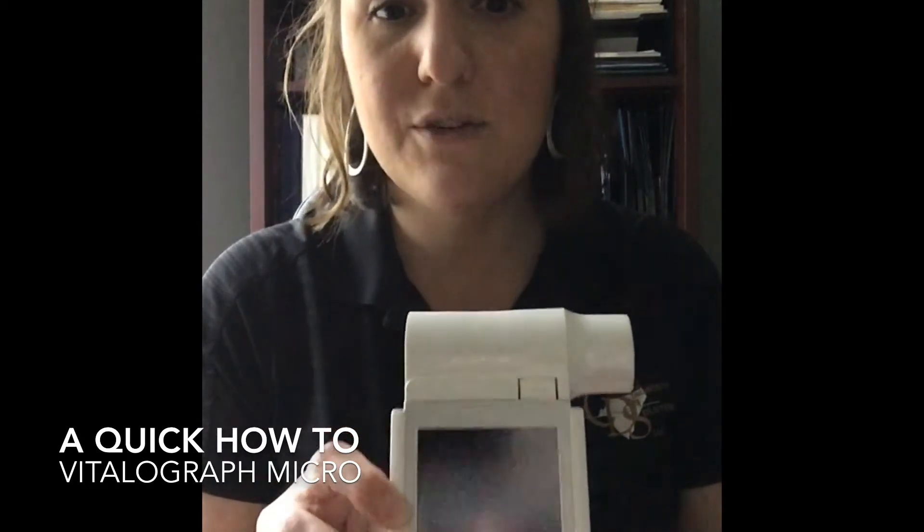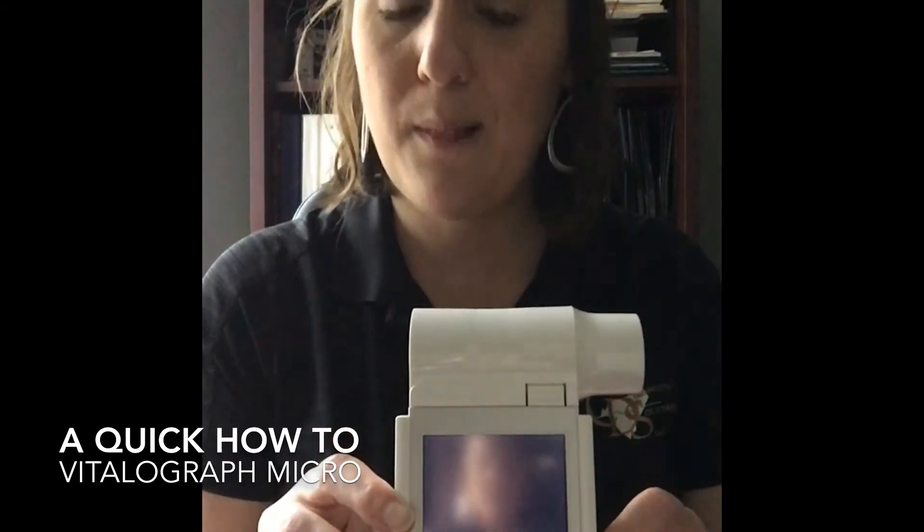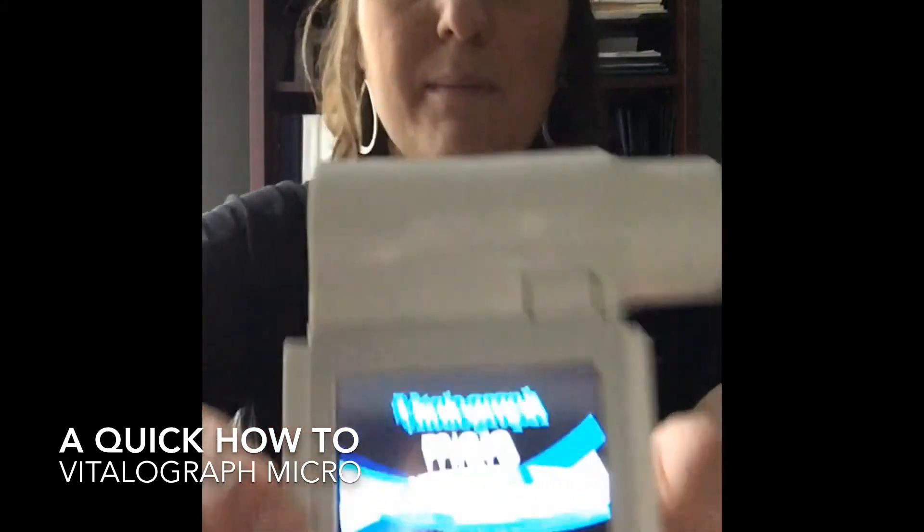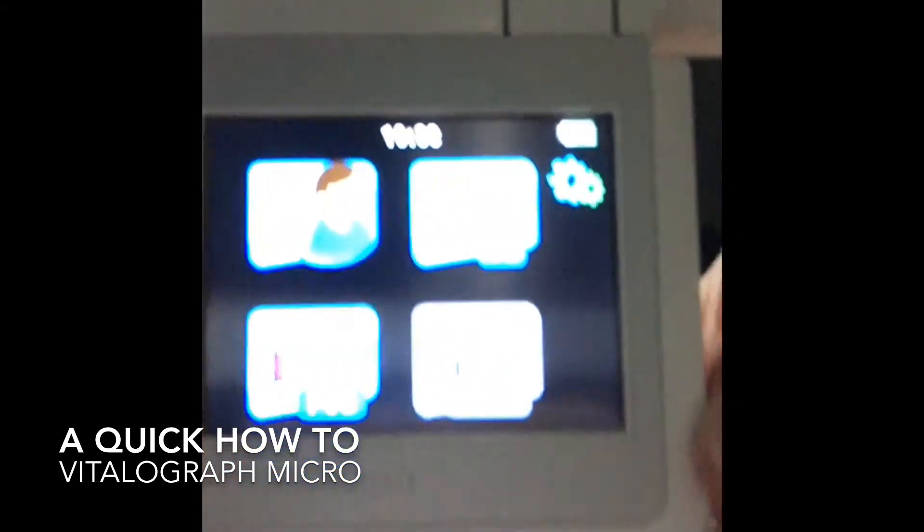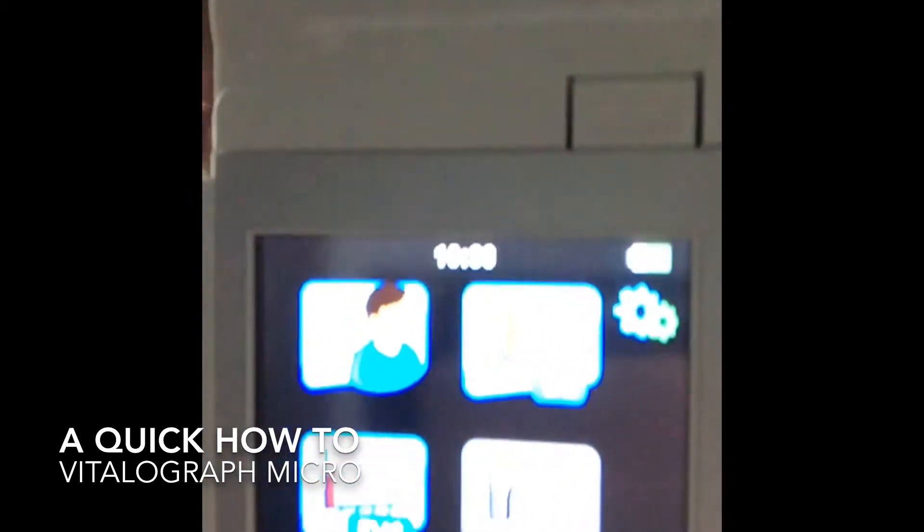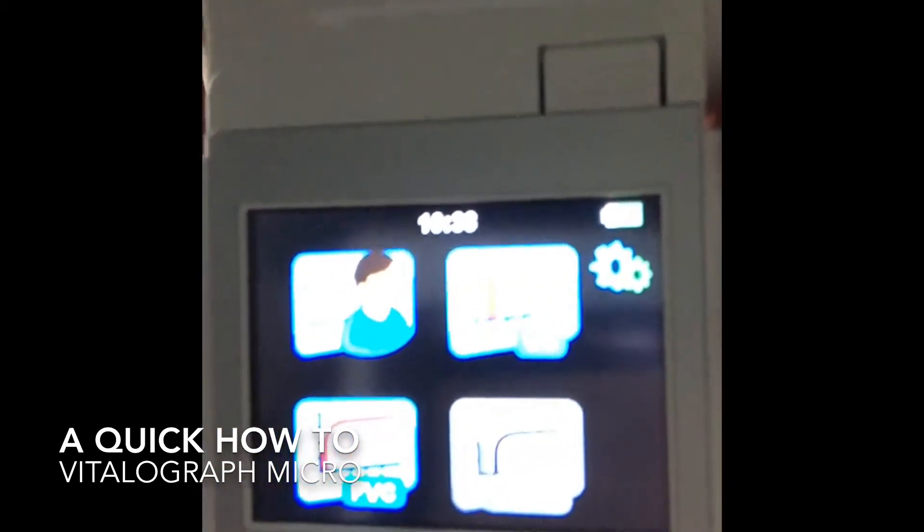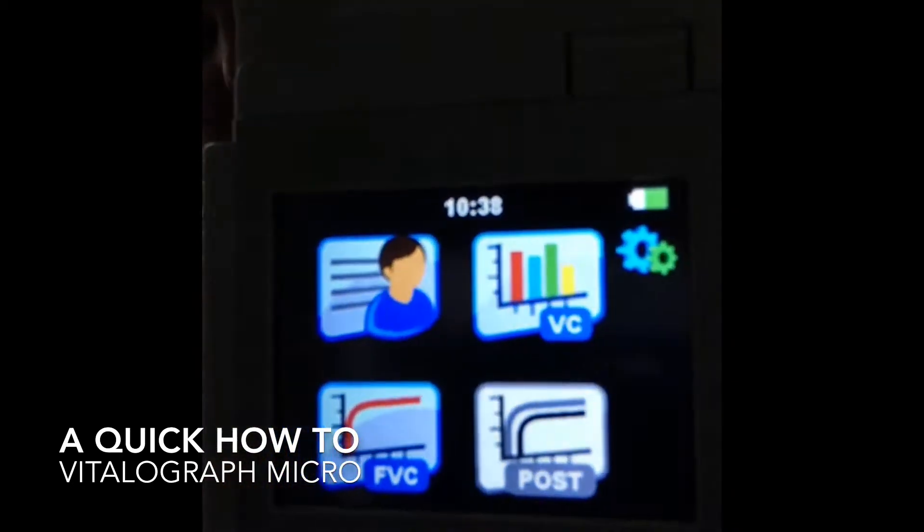All right, to turn it on, essentially just fire it up like so. It makes a beautiful sing-song sound, and our screen is right here, and from here, we are going to look specifically at how to enter a patient.